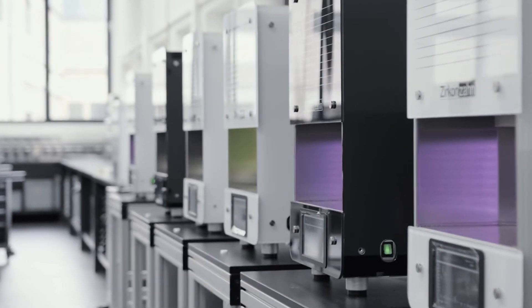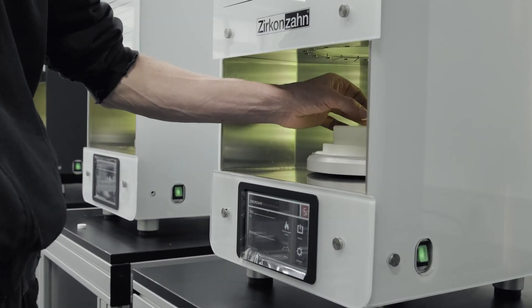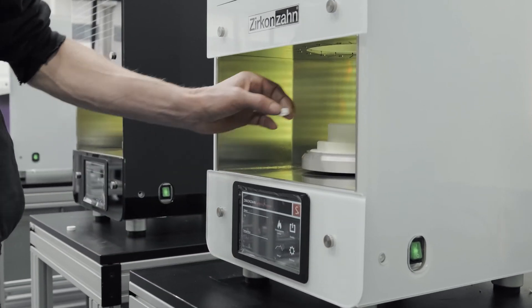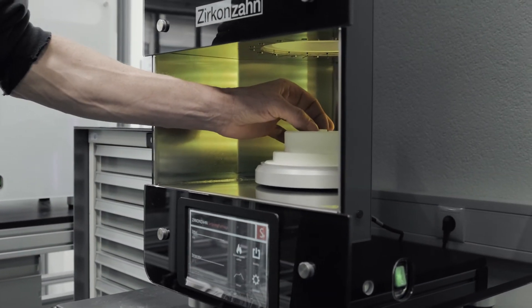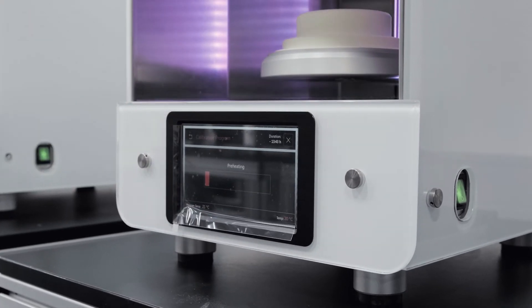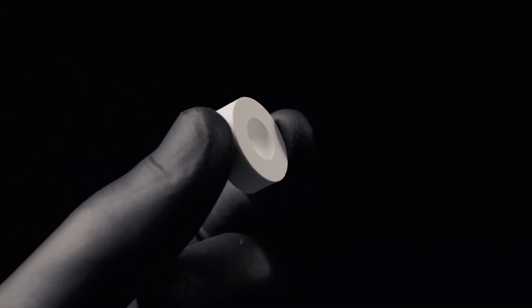Before delivery, each furnace is perfectly calibrated to allow high-quality sintering results from the very first moment. However, when replacing certain components, incorrect sintering results may occur and the furnace must be recalibrated.